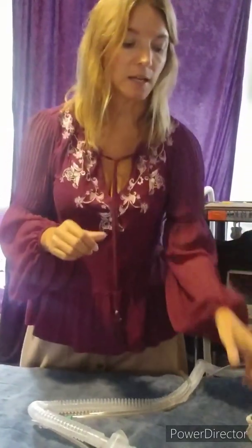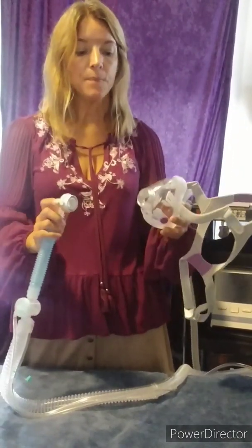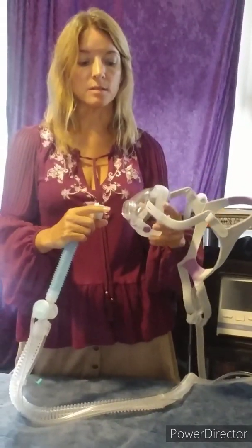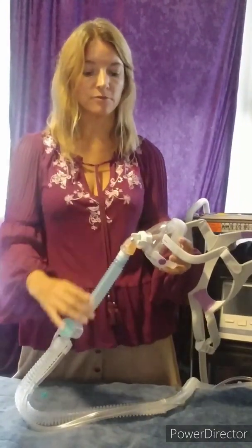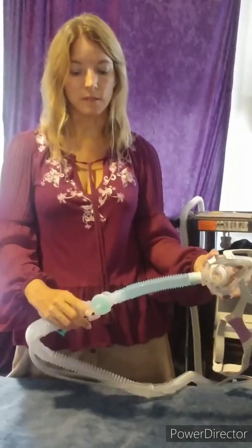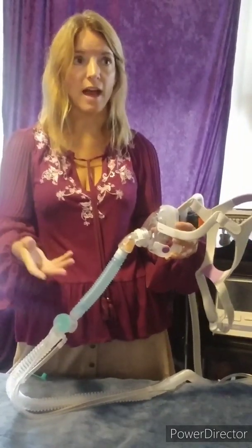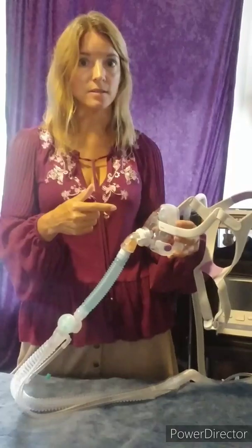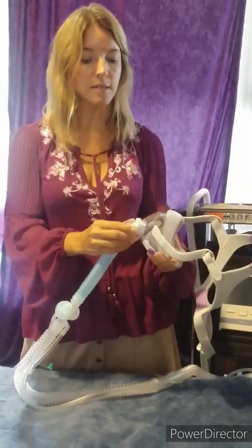If you have any other questions, you can contact me — just let me know if I can answer them. One other thing to mention: this is not the mask typically provided with the active circuit. The mask needs to be unvented or minimally vented so that you don't have alarms going off on the machine, since exhalation is handled by the circuit. You would have to make sure your DME company is aware of that if you did not like the unvented silicone mask they provide — my daughter just didn't find it comfortable.